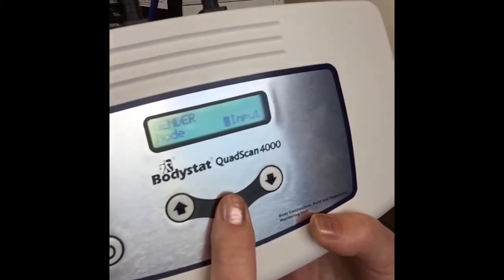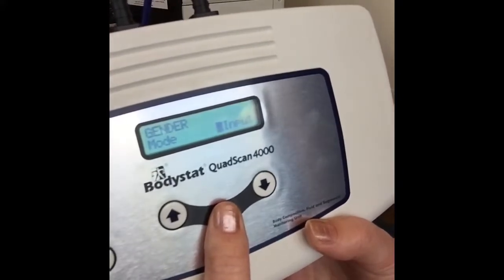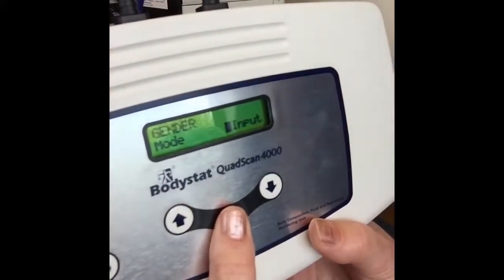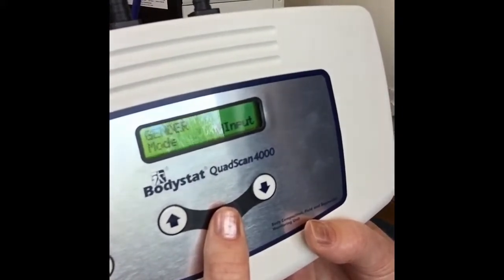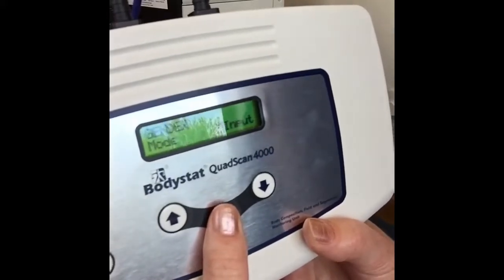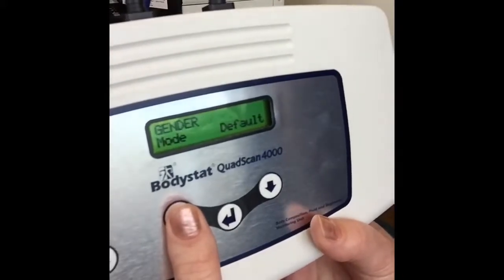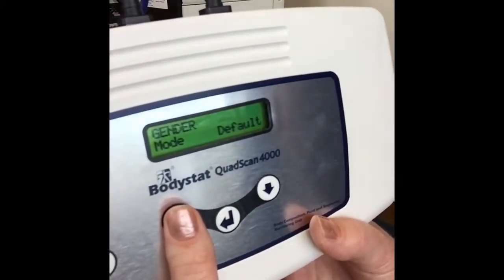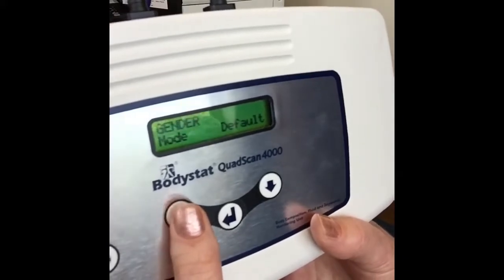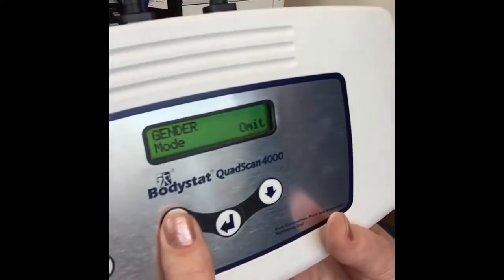You press enter. The next option you have is to actually have that as an input, which means you can customize that at the time of the measurement. So if you know that all your tests are going to be male, you can actually have the option of defaulting all tests to male, and it won't even ask you at the time of the measurement to key in male, or you won't have the option to change to female either. So depending on your population group, normally, you also have the option to omit this.